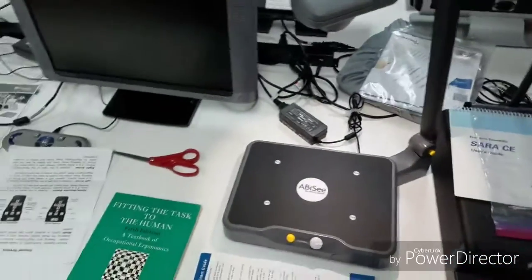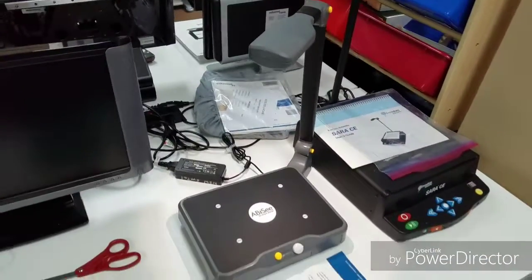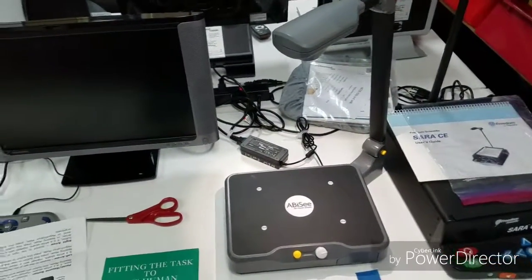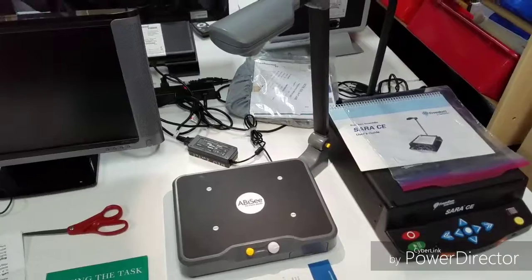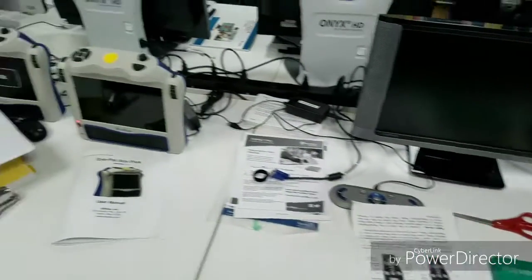Please place your document. And then as we take a document off of that particular one, it will stop reading. Not all of them will do that, but this one was meant to be fairly simple in operation for individuals who are a little bit older or who aren't able to understand many of the complex features that the others have. There's also quite a few portable options.